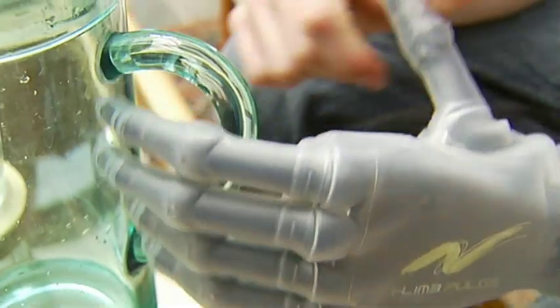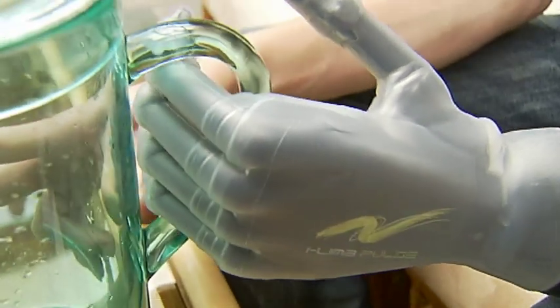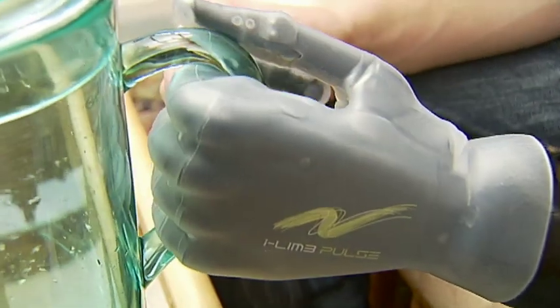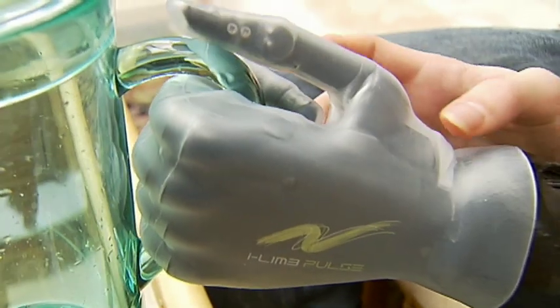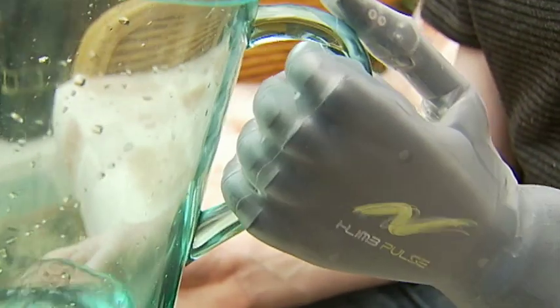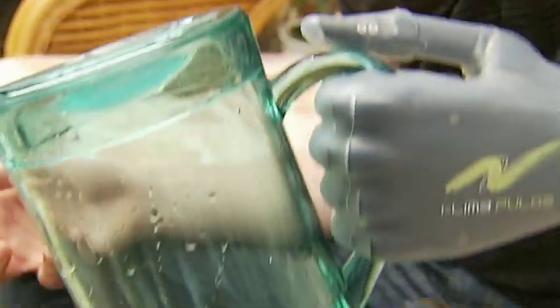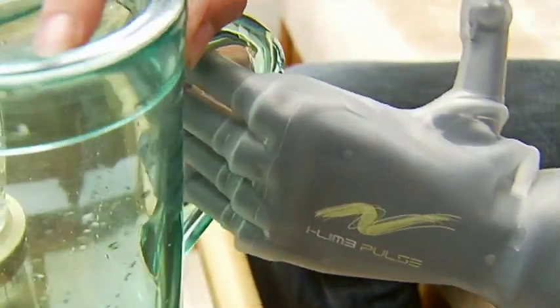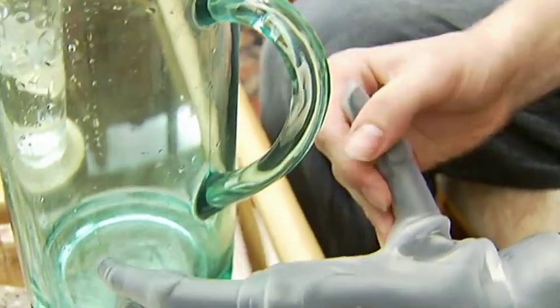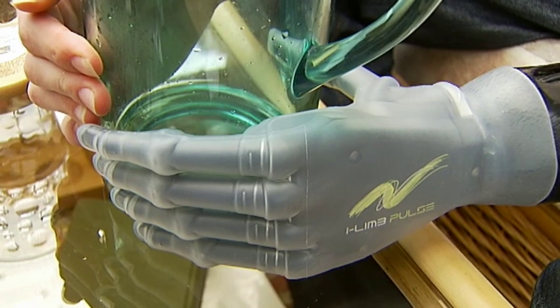I'm going to try grabbing the handle — it's always good to start with what you would normally do. Position the thumb. The grip is fine, but as for pouring, not so good. I can't twist it enough there. So to get more leverage, I'm just going to have to grasp the base on this one.